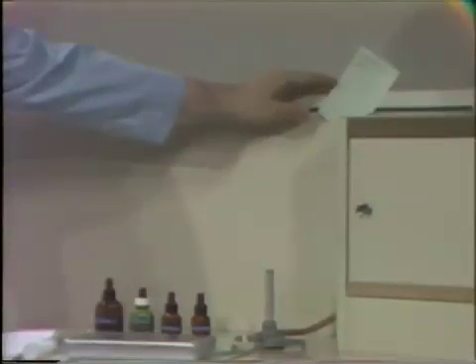We always have a Bunsen burner. Up in the corner of the cubicle we have our green card. This card you've seen on your root canal box. The purpose of this card is to tell us when the last time was that you had this box sterilized, as indicated by the date stamped on it. We would prefer that you not have this date exceed a week. Also, that card in the corner tells any endodontic instructor coming into your clinic that endodontic treatment is going on at that time in that cubicle.